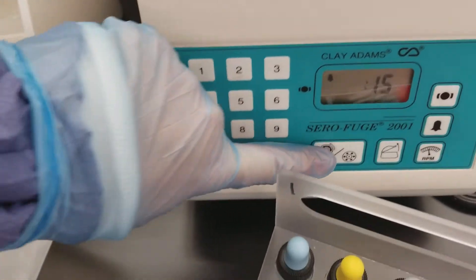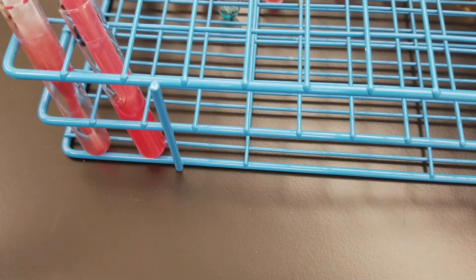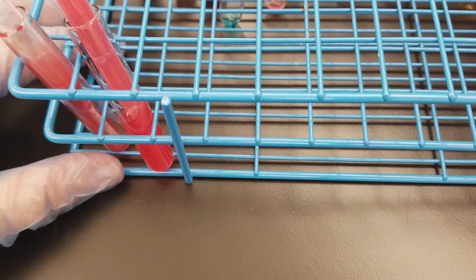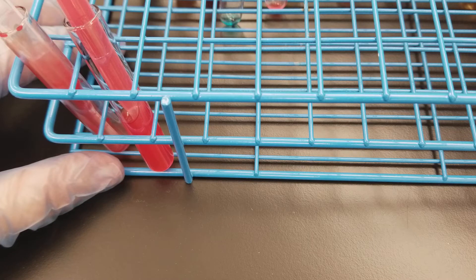If a patient does not have a previous history of transfusion or pregnancy — or whatever your hospital policy follows — then you can just do the immediate spin cross match. If they do have a history of multiple transfusions or multiple pregnancies, it's a good idea to do it all the way out to the AHG phase. Today I'm just going to do the immediate spin. You've all seen what the other phases look like — it's the same kind of thing as the indirect antiglobulin testing.